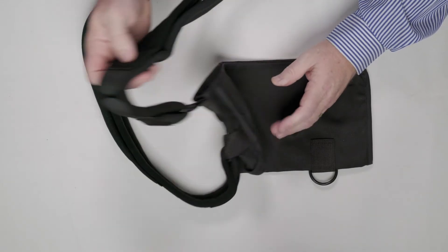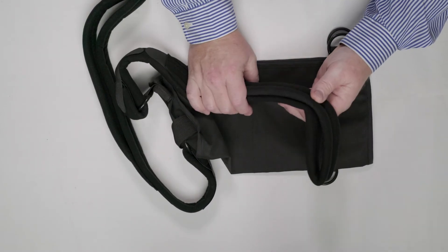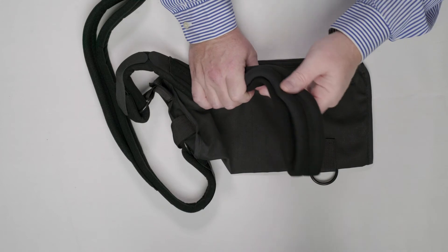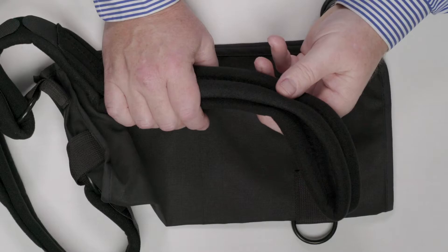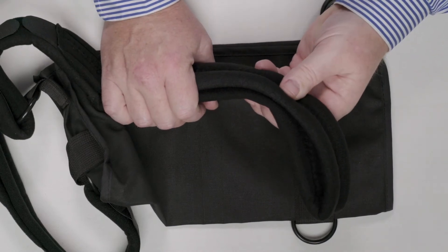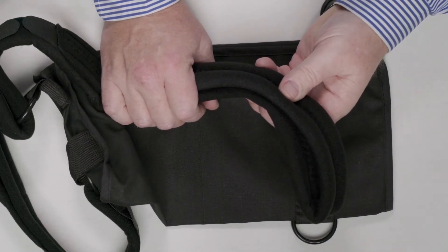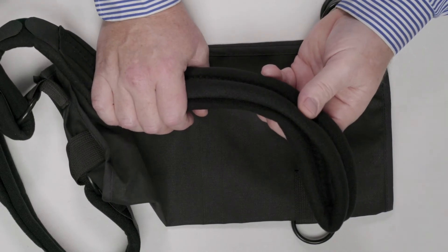The rings are not the only solution to the pain found in a sling — the straps are so important. Feel these straps; the entire strap is padded. These straps feel good, and since they adjust to the girth, they do not dig into the patient's neck. We pad both the neck strap and the waist strap for maximum comfort for the patient.